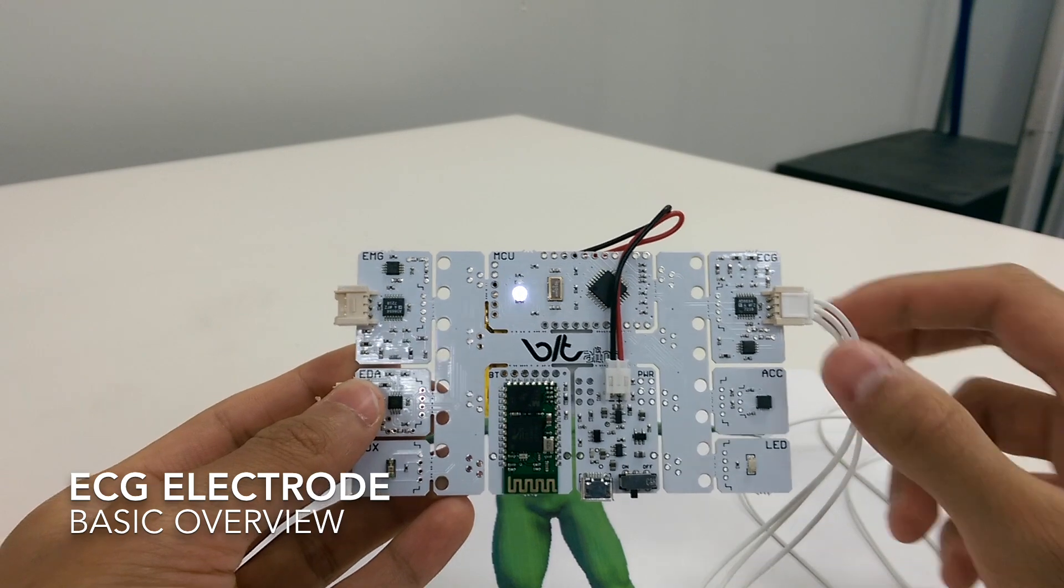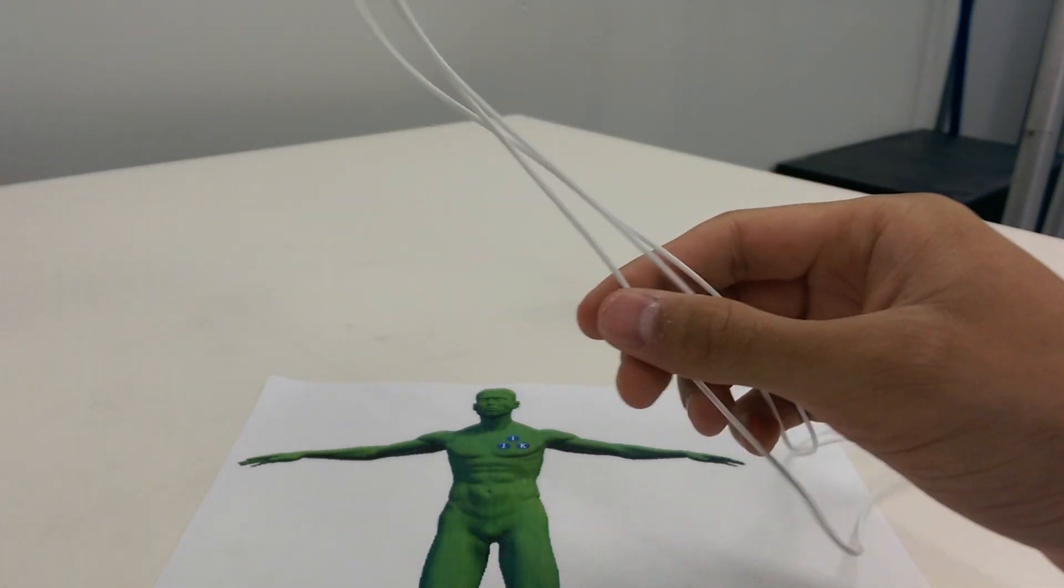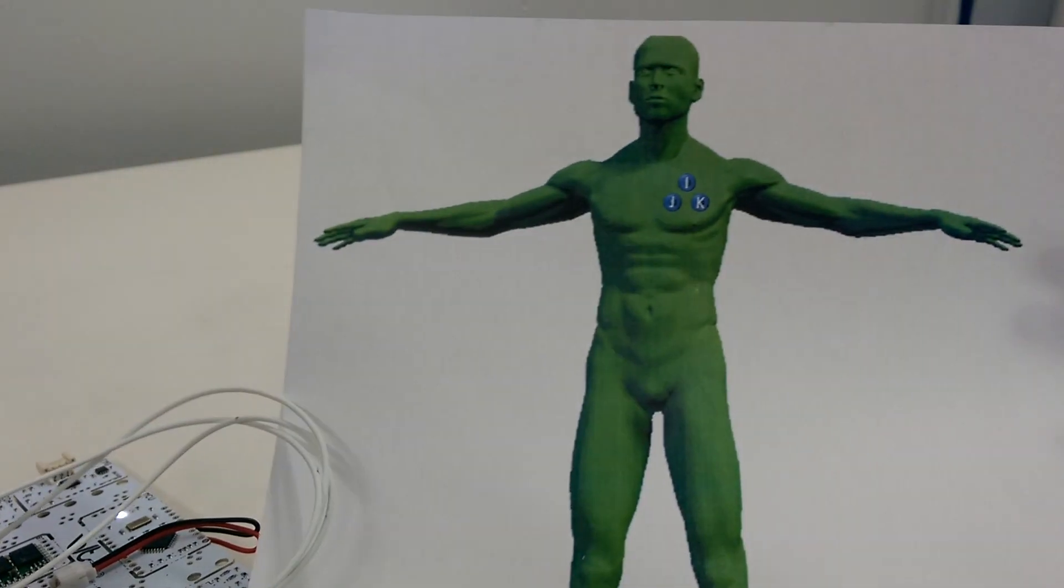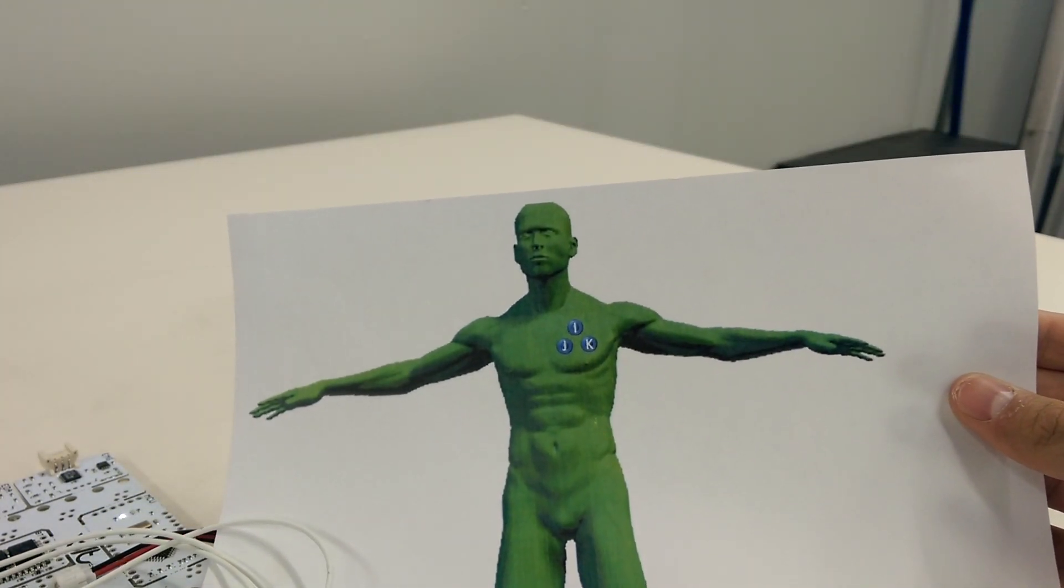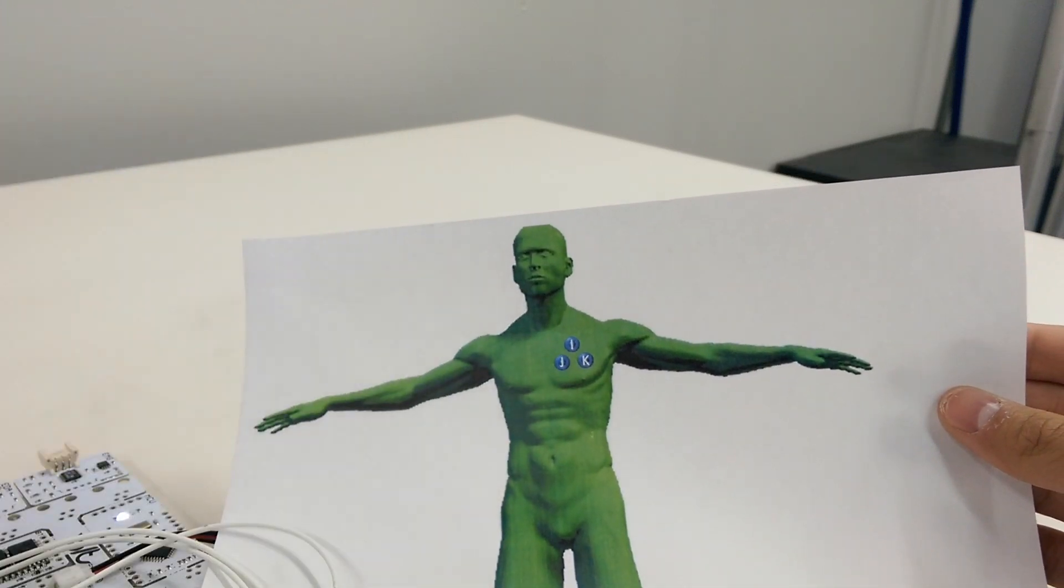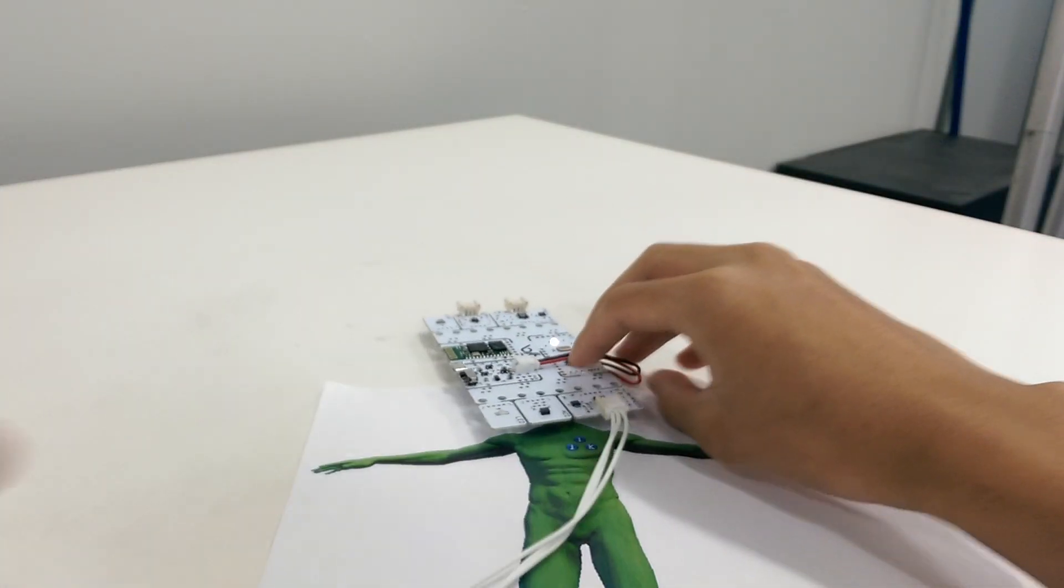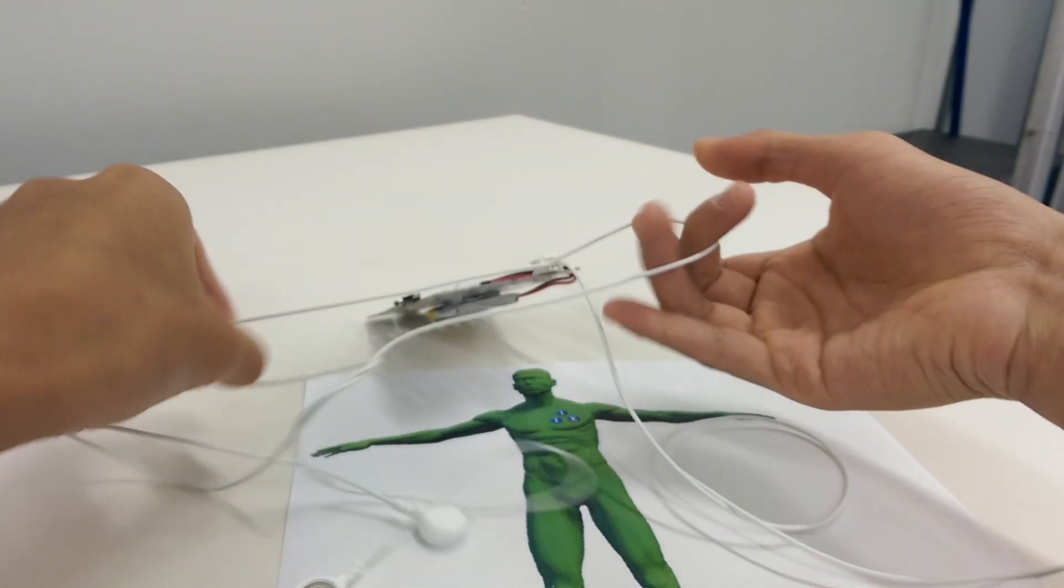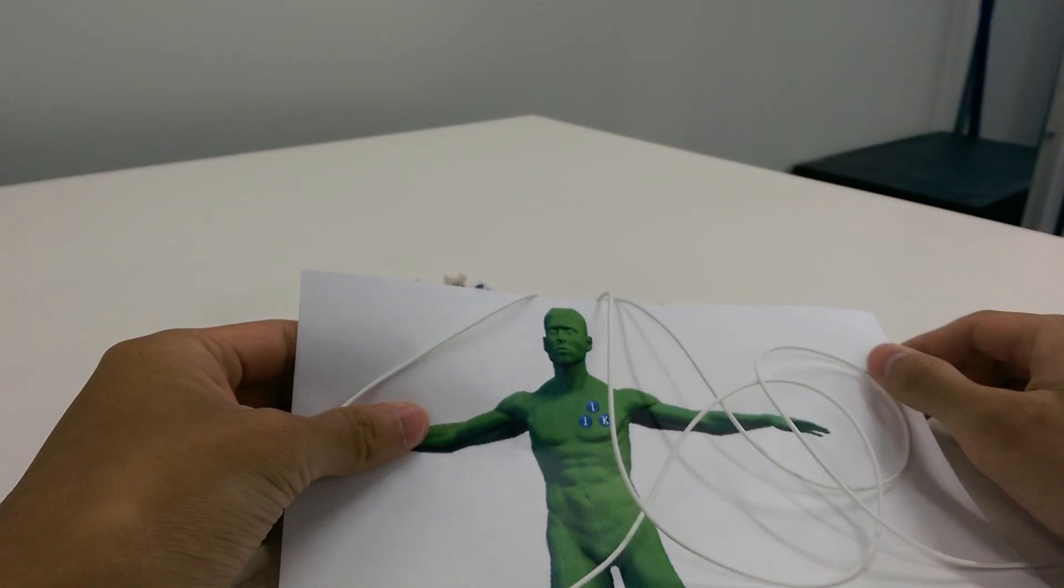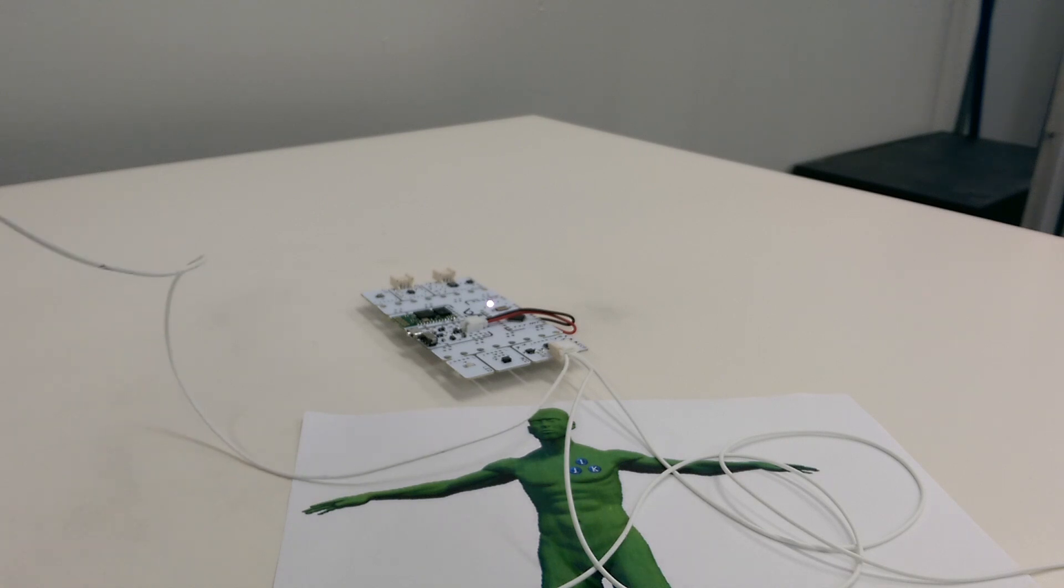Okay, so now looking at the ECG specifically, the way to put it on is actually by using this cord right here with the three prongs as you can see, and this diagram right here. The electrodes will be placed on the body using these stickers right here, these electrodes that are pre-gelled electrodes that you stick onto the body. The one tricky thing about putting on the electrodes is that the placement on the body is extremely important, because if these three cords are not placed at the correct location, then it will actually produce incorrect information. The actual ECG data will not look like the classic QRS heartbeat data.